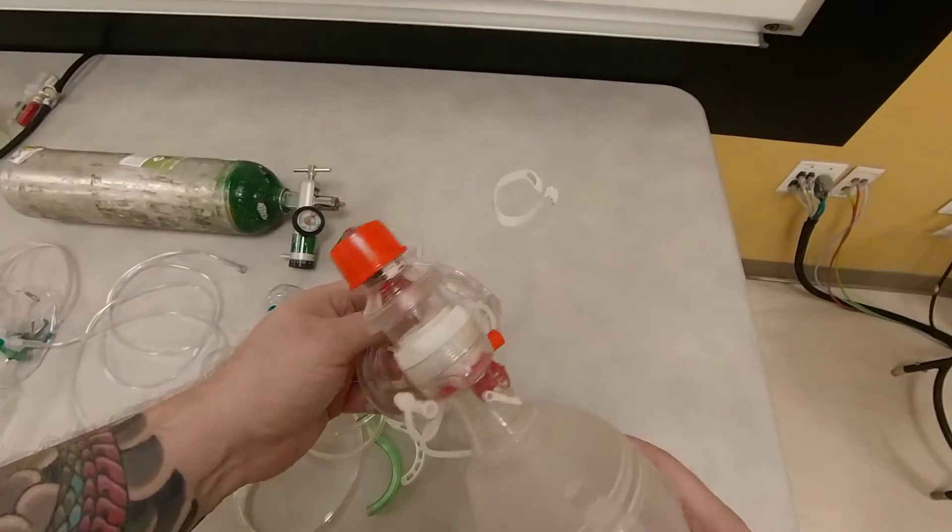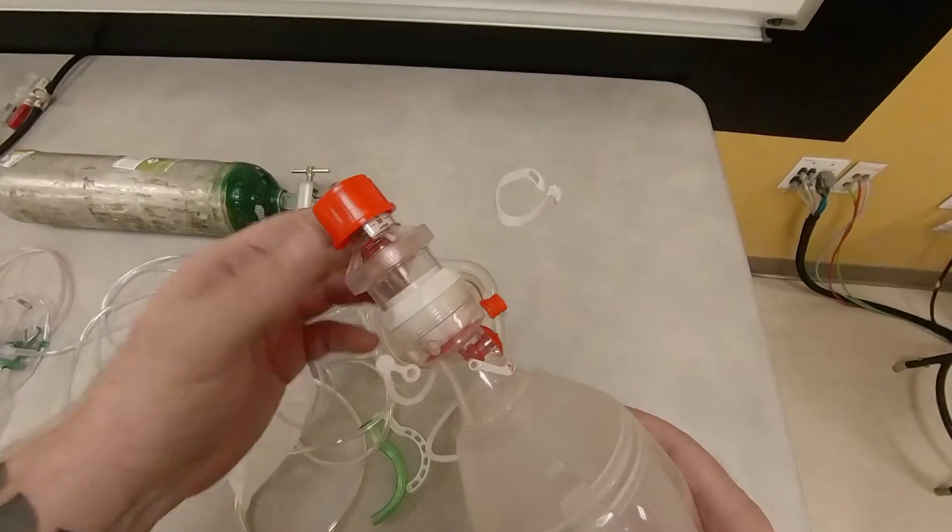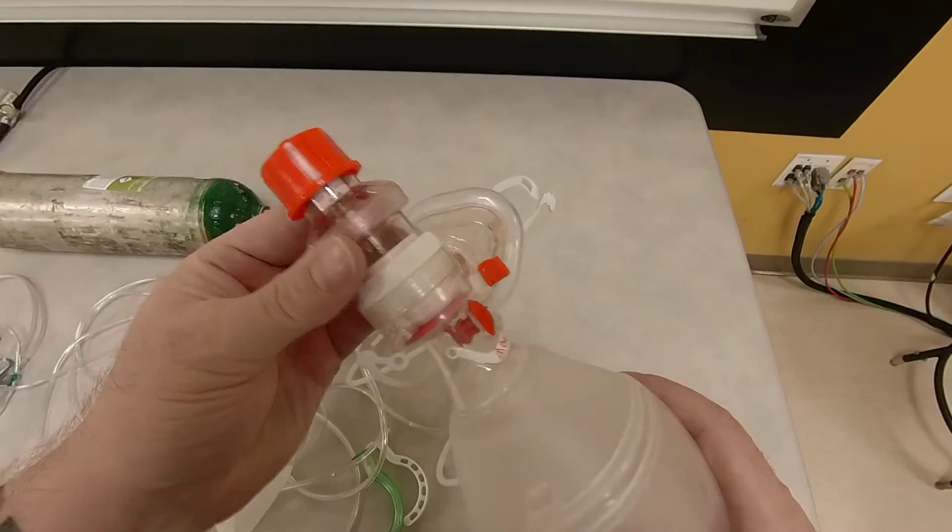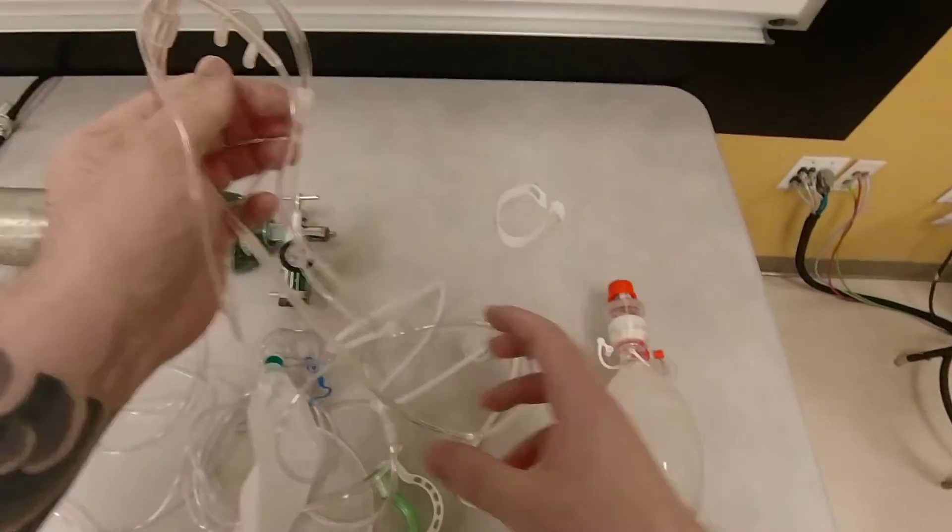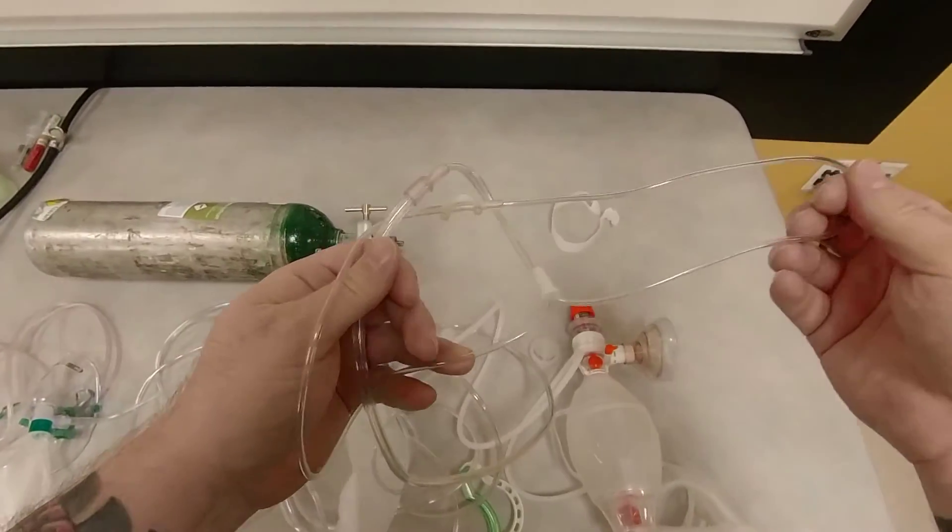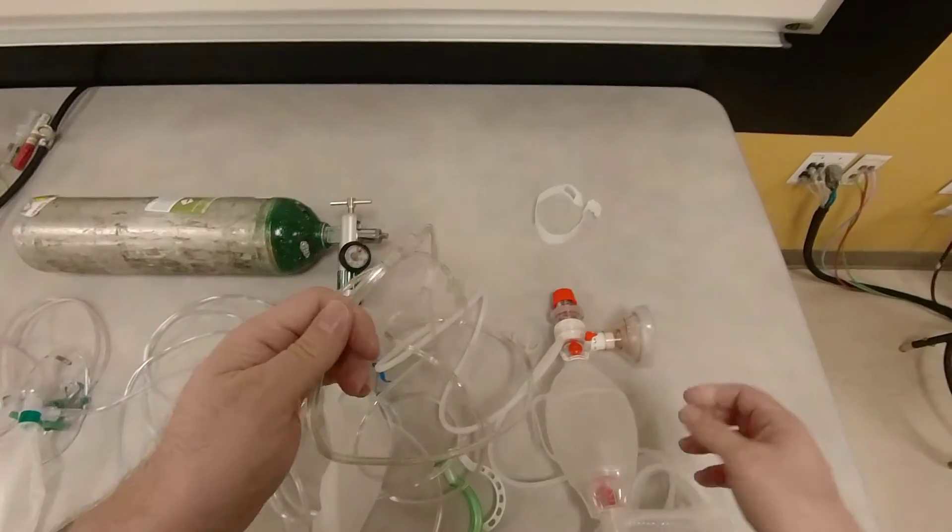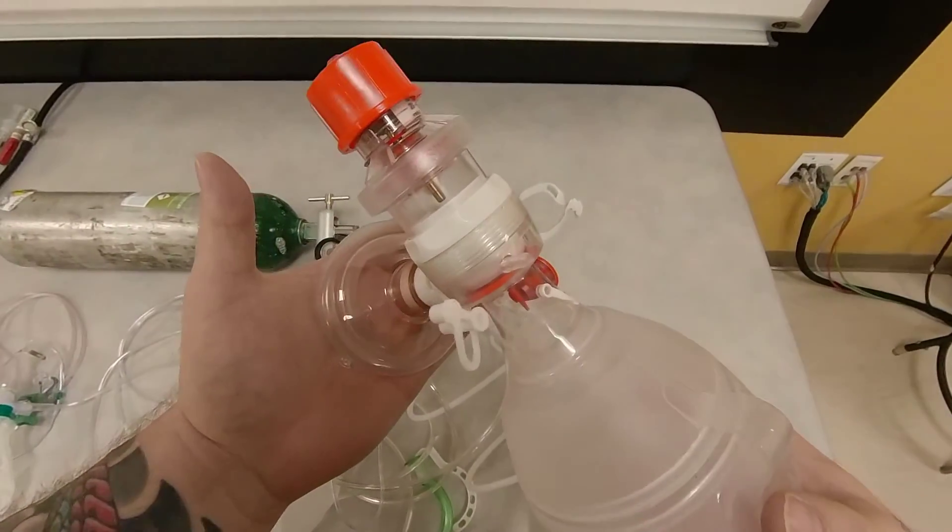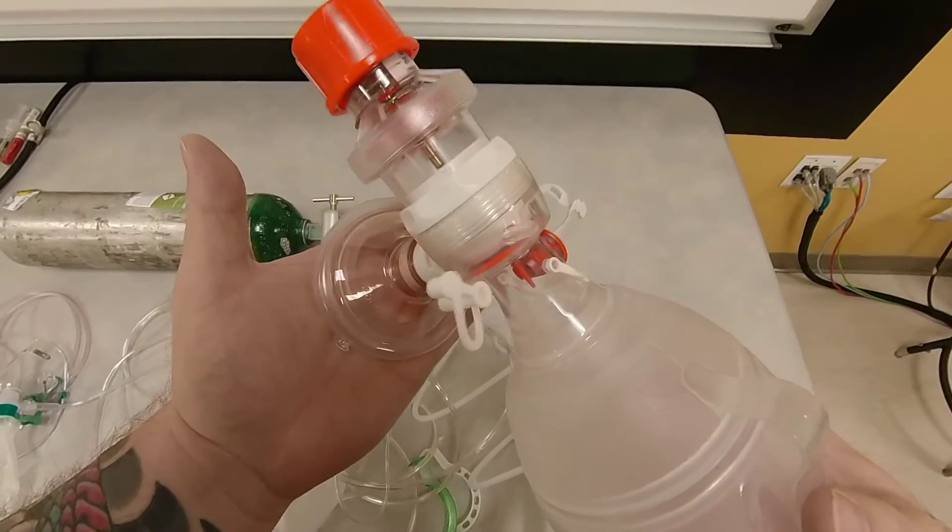And I want to again emphasize, if you want to use this device to hold on the patient's face so that they get pre-oxygenated, you need both PEEP valve connected here and you need a nasal cannula that's running at 15 liters per minute to generate flows to sustain that positive end-expiratory pressure that the patient is getting in order to pre-oxygenate them. Thank you.